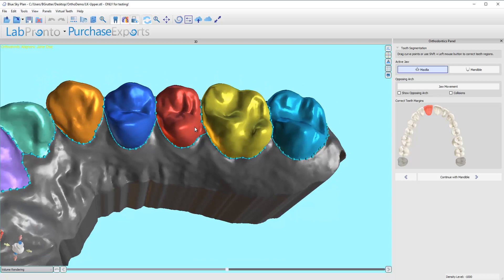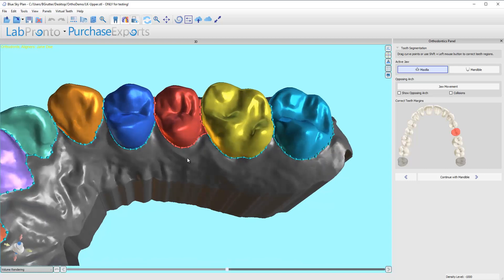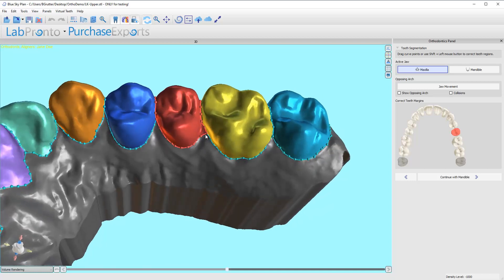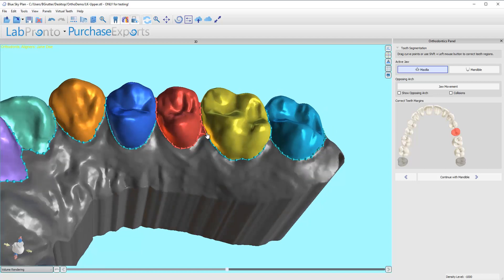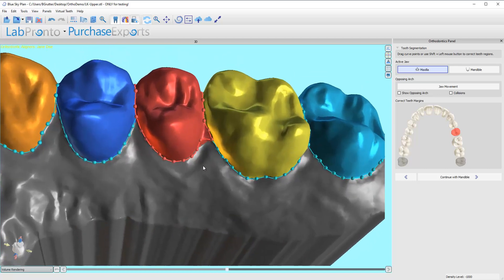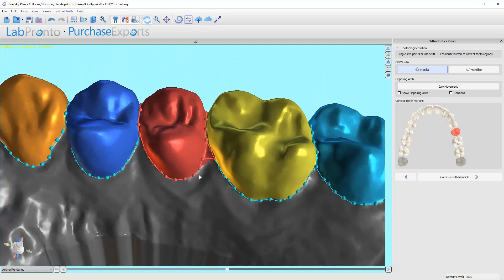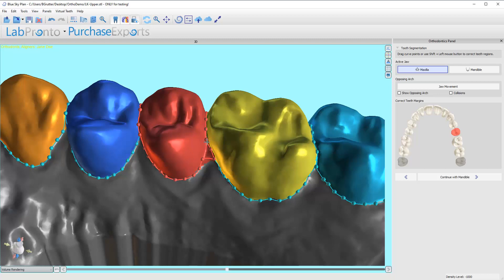So let me click on this tooth and now whenever you click on a tooth it becomes active, it turns red. And now I have the ability to simply move a node wherever I want, but I can also redraw by holding the shift button. So instead of just moving each node, I can hold the shift and it turns my pointer into a crosshair and then I can draw.